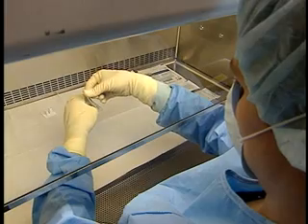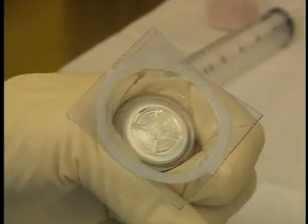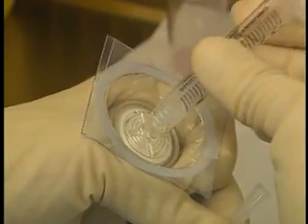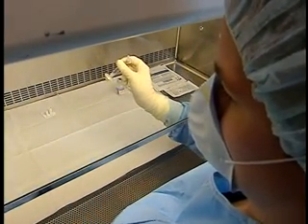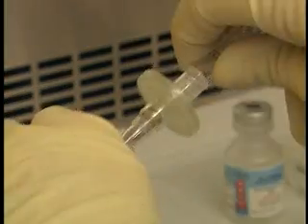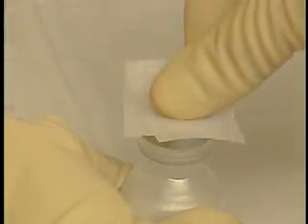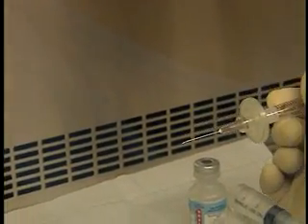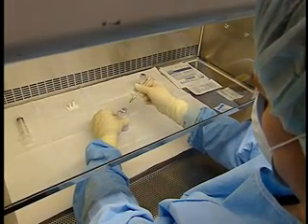Unpack the filter, grasping the sides of the disc firmly so it does not fall out of the package. Remove the cap from the venting syringe and attach the filter without taking it out of the package to prevent contamination. Once the filter is attached to the syringe, remove the packaging. Attach a small gauge needle to the filter. Loosen the anti-neoplastic powder and disinfect the stopper.